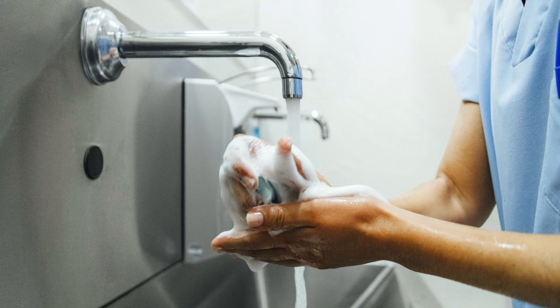As always, it is important to practice standard infection control measures, such as thorough hand washing for at least 20 seconds after touching the device, to minimise the spread of infection.